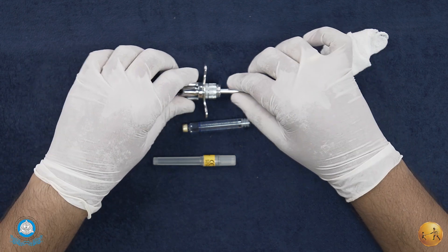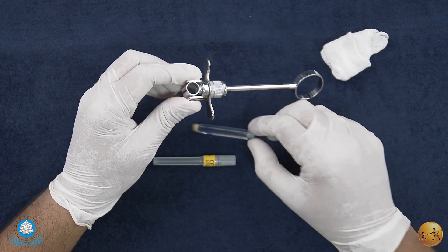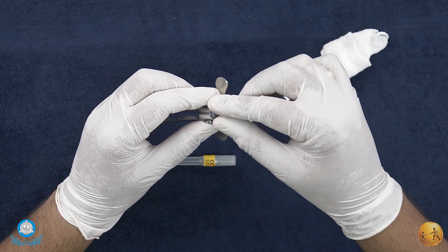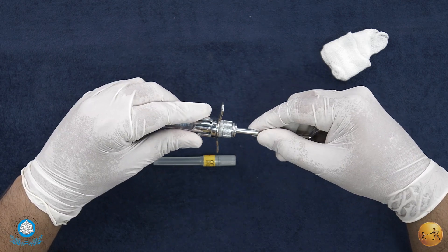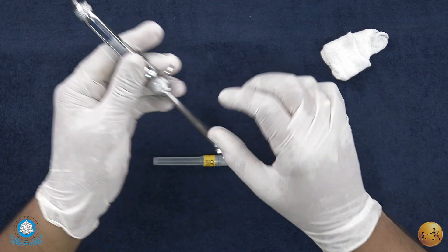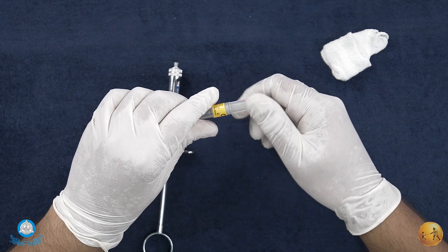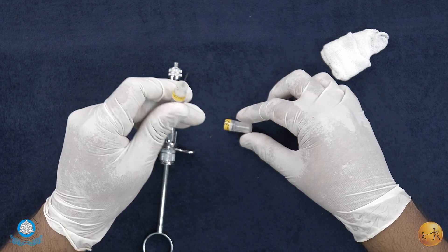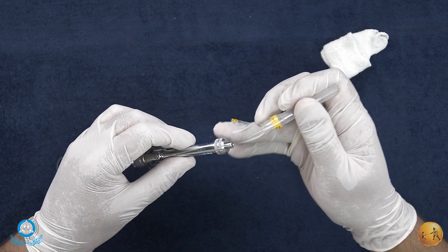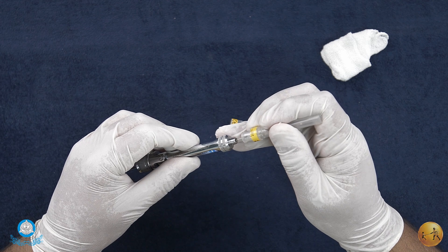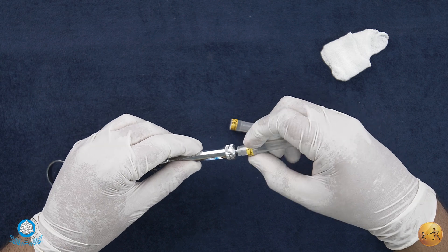We'll quickly show you how to assemble the actual cartridge. That's the end loading - you can see the cartridge goes in like that, so it has to sit in place. Now the needle has to be opened. You see the back end here - this is the one that actually enters the needle adapter.